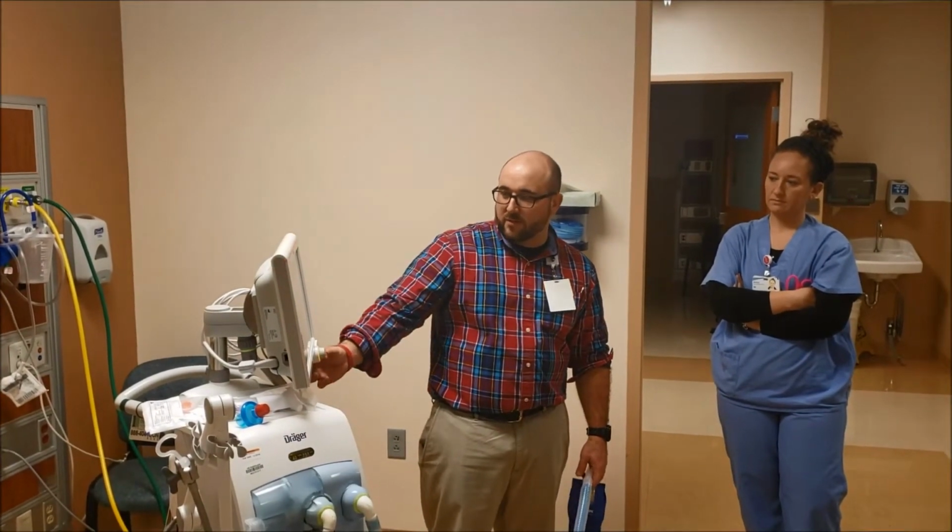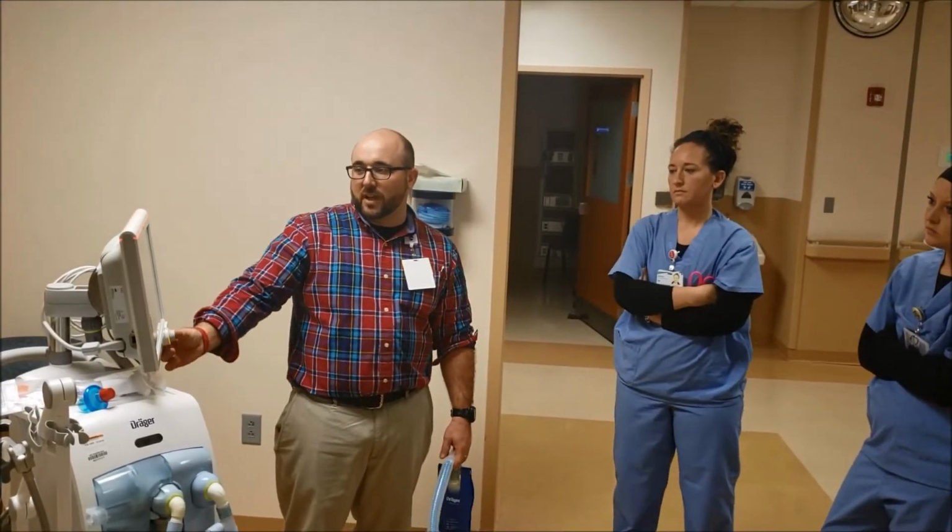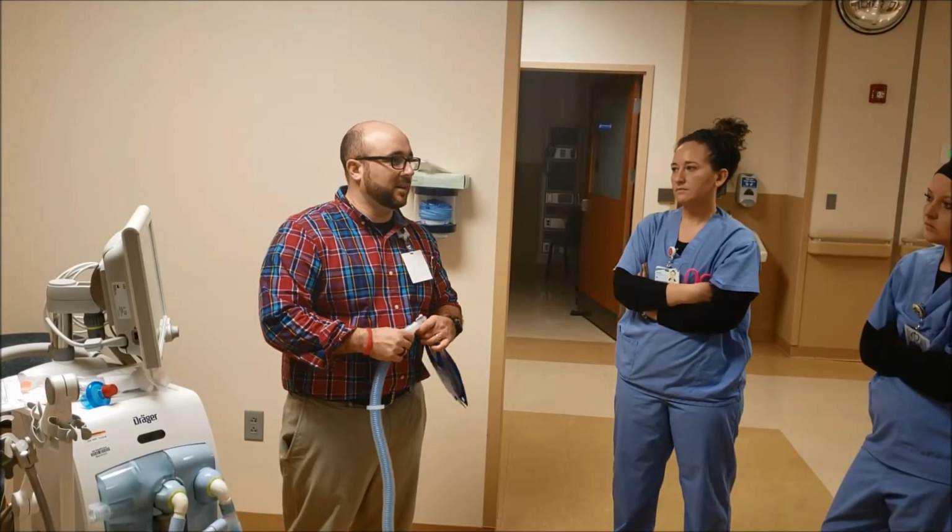Cool. Great. Any questions about that at all? Alright, so to shut it off, RTL used to be here, but you touch this one right here, hit standby, and of course you gotta confirm it, and then immediately it's gonna give you an alarm, saying you know what you just did, and you gotta say okay, you gotta reset the alarm.